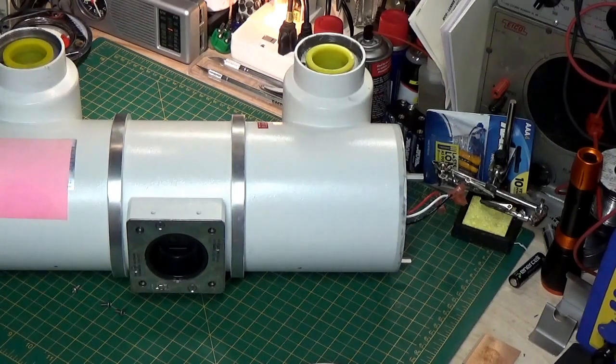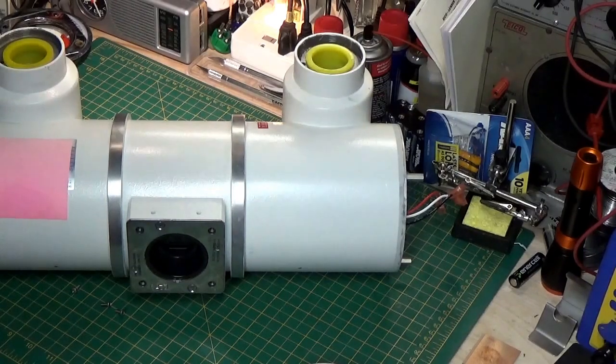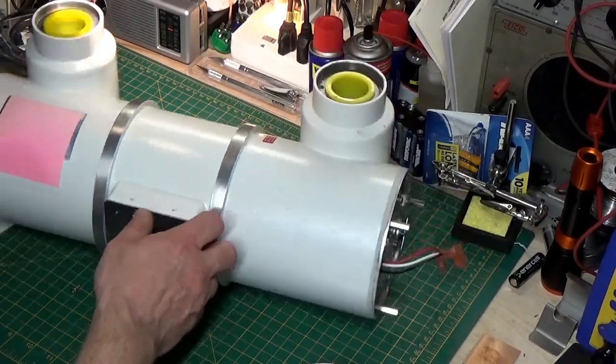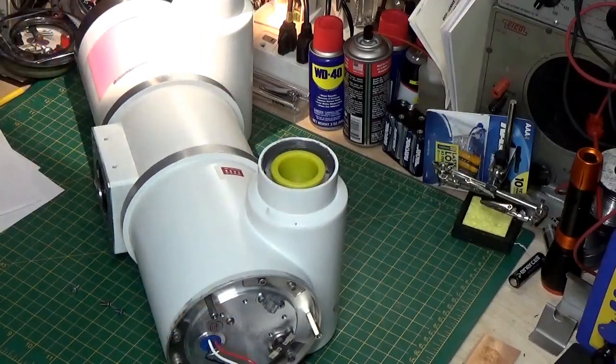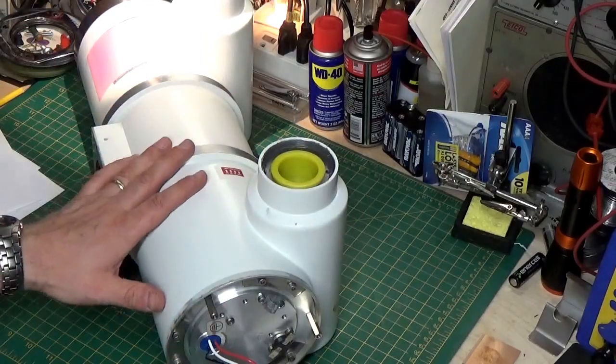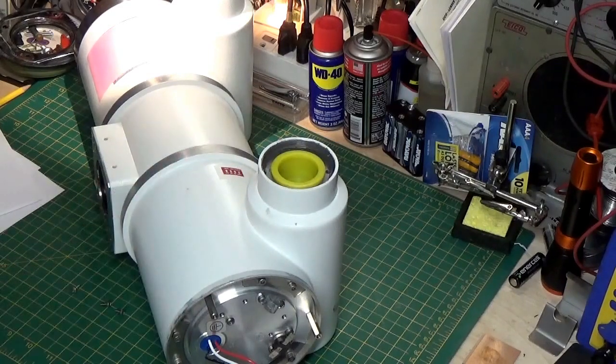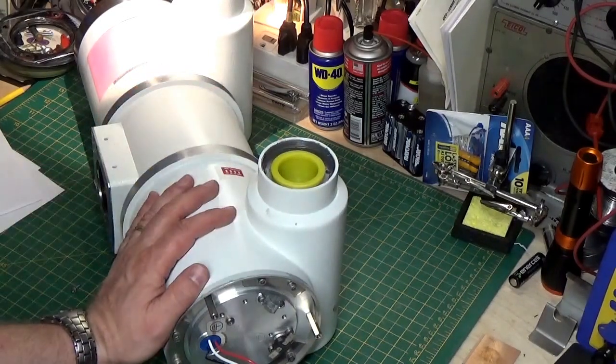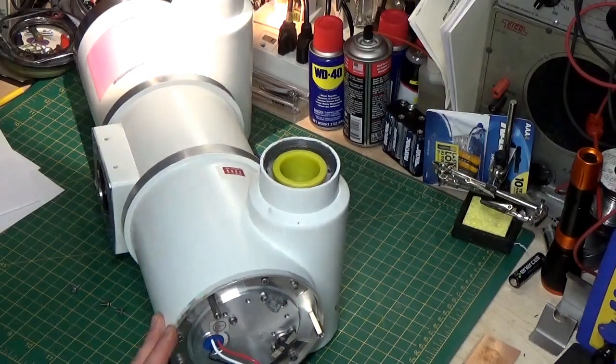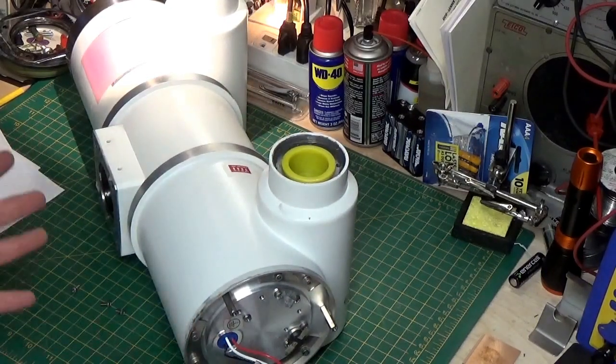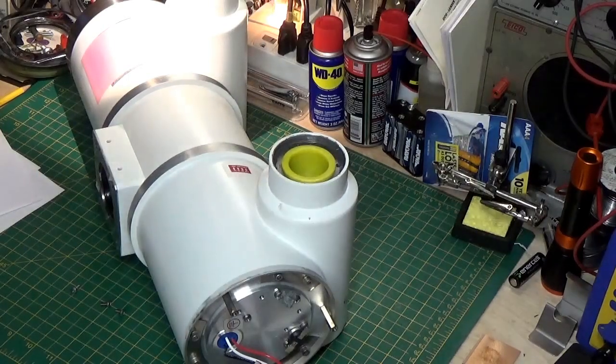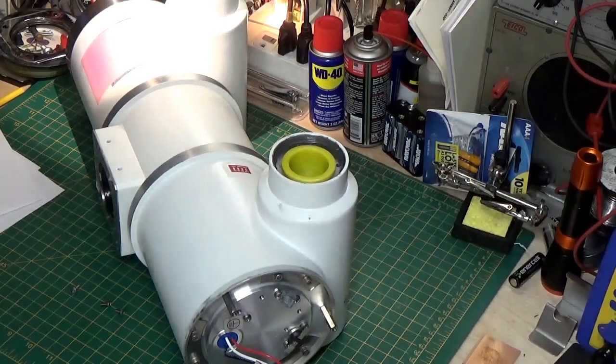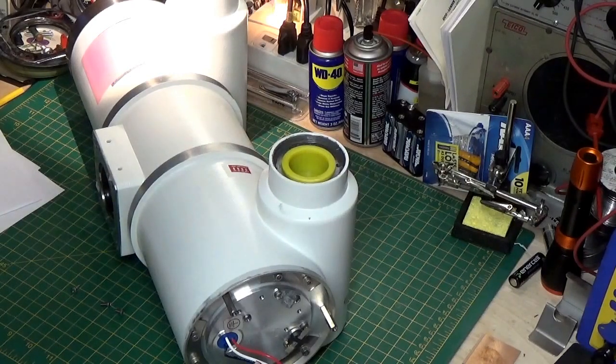So, I hope you learned a little bit about this x-ray tube and how a tube works. I'll probably do some more things and show you some more when we talk about how we control this x-ray tube. The big power supply that drives this is called the x-ray generator, and it can be very complicated to get the different forms of radiation we need. So, we'll get into that on another, maybe on another video.